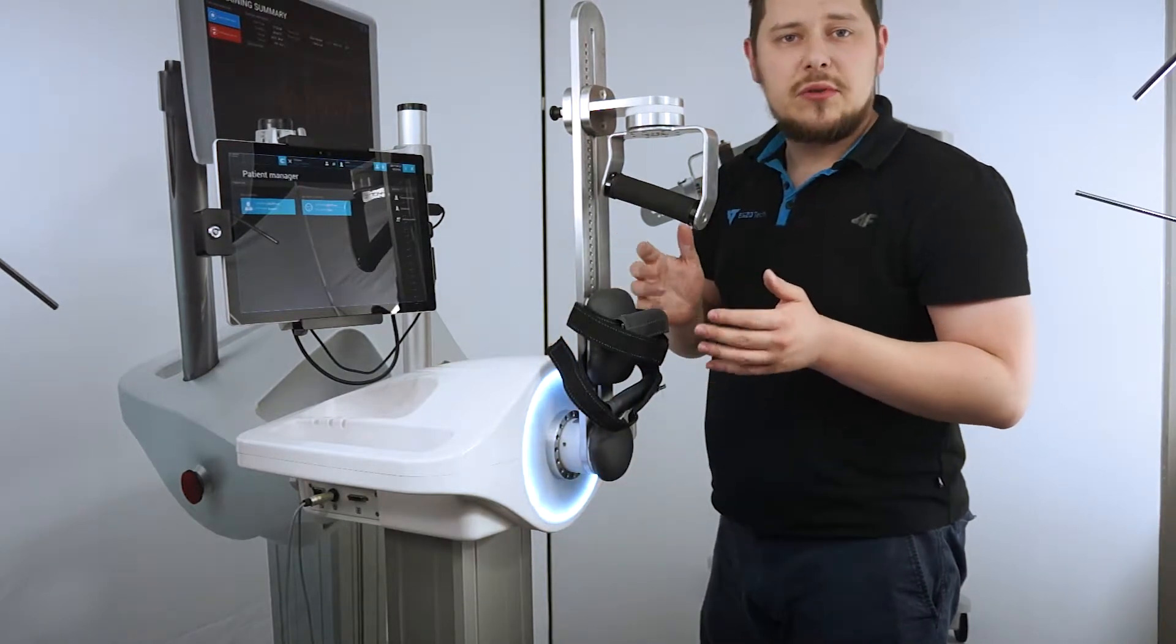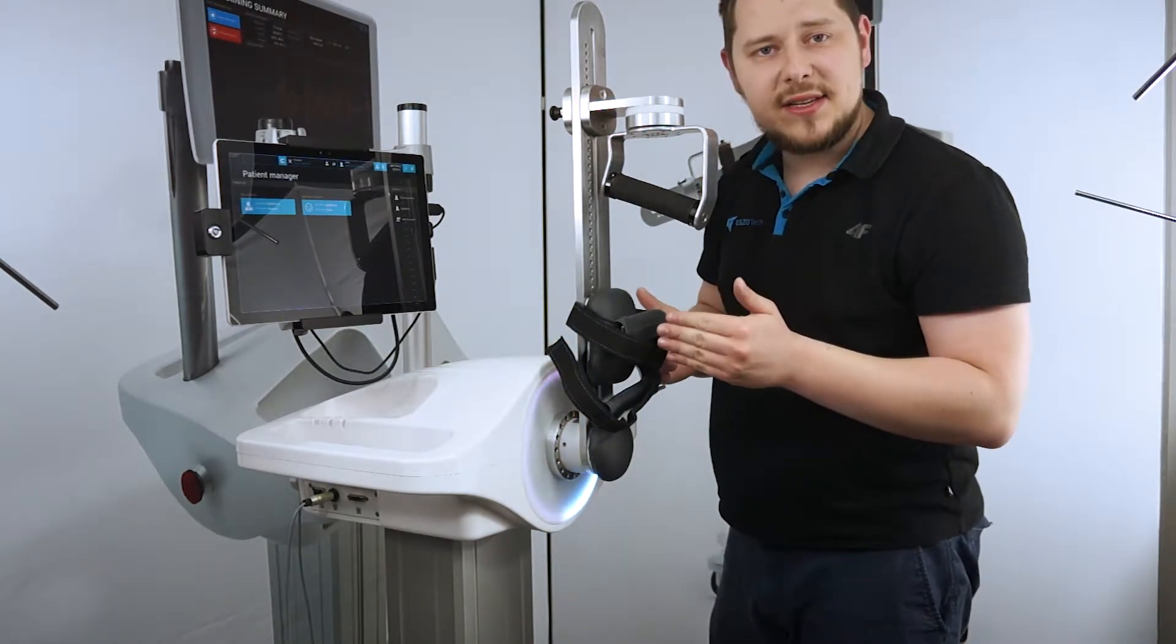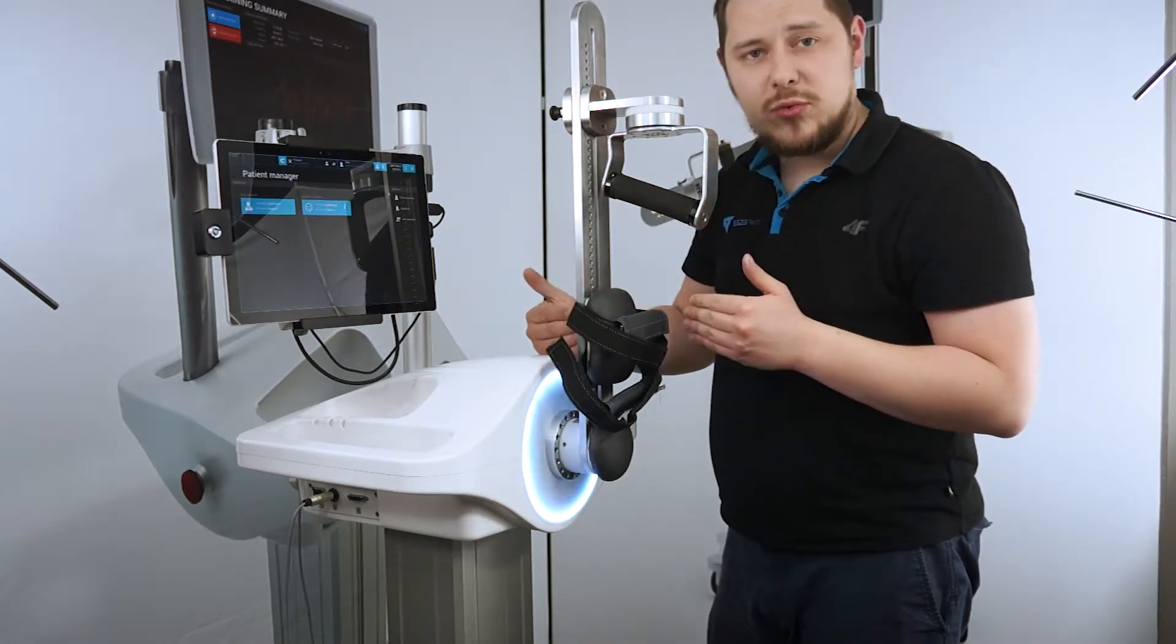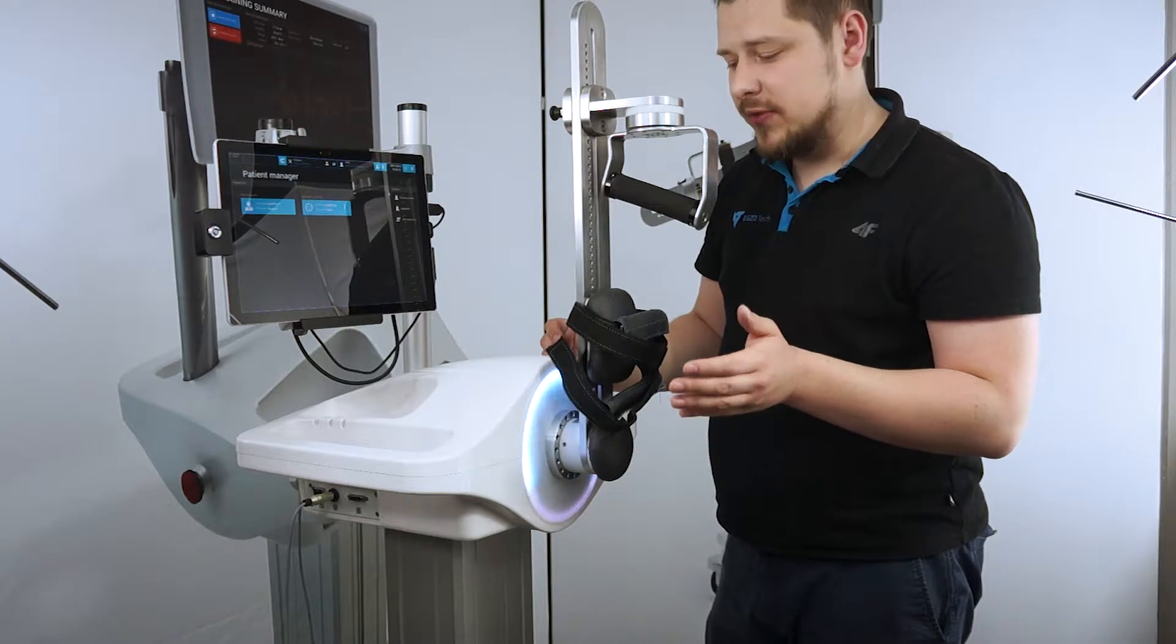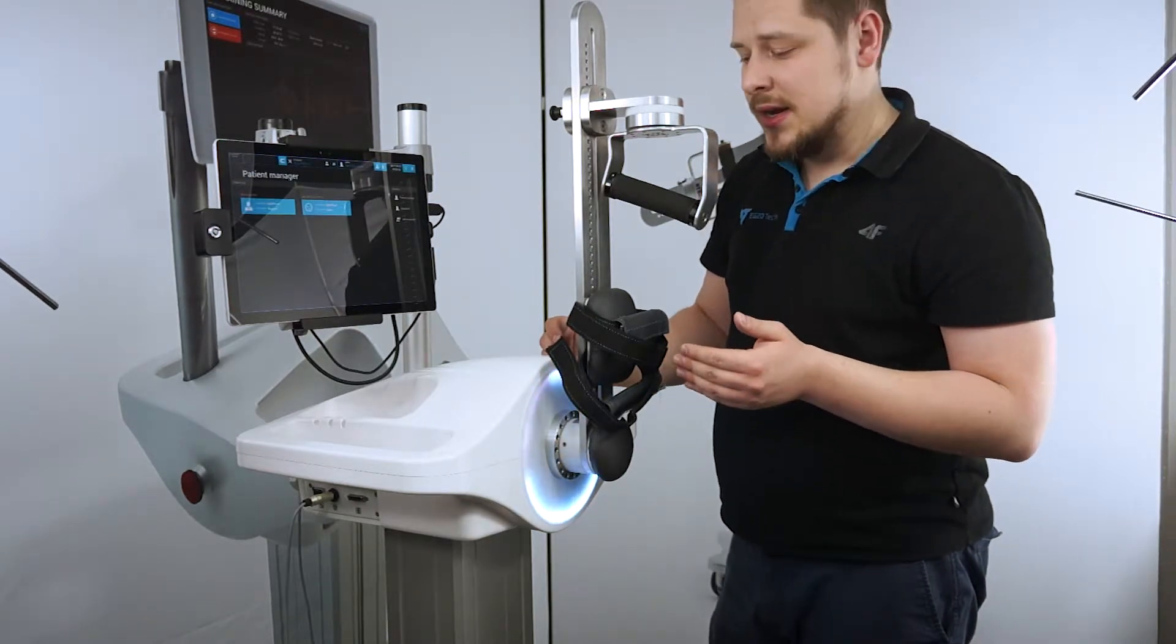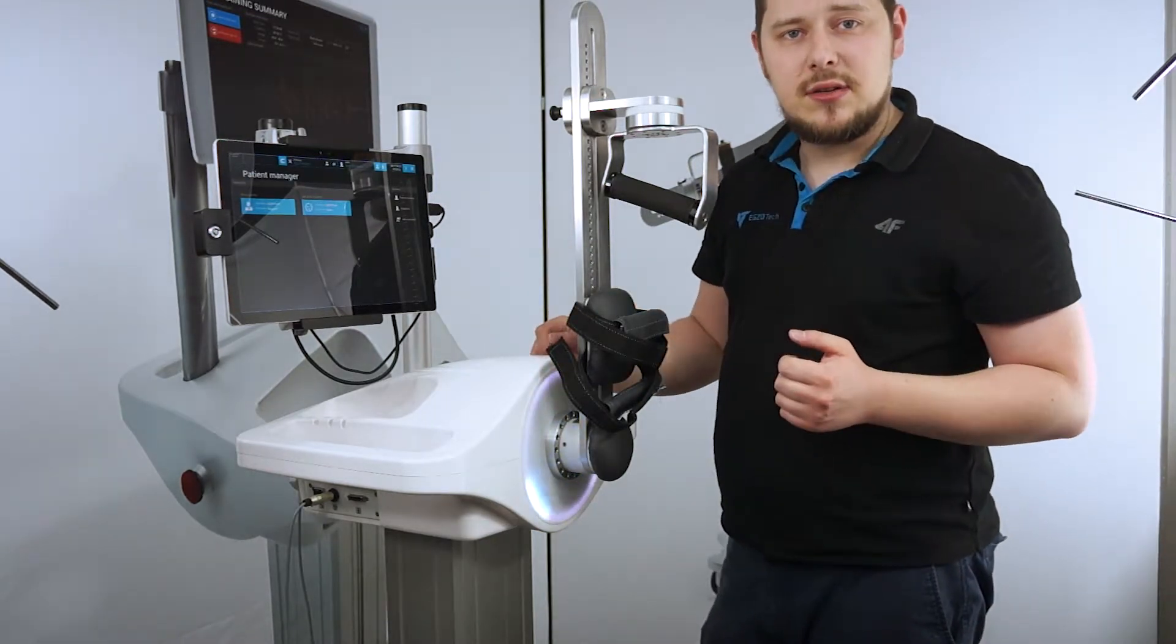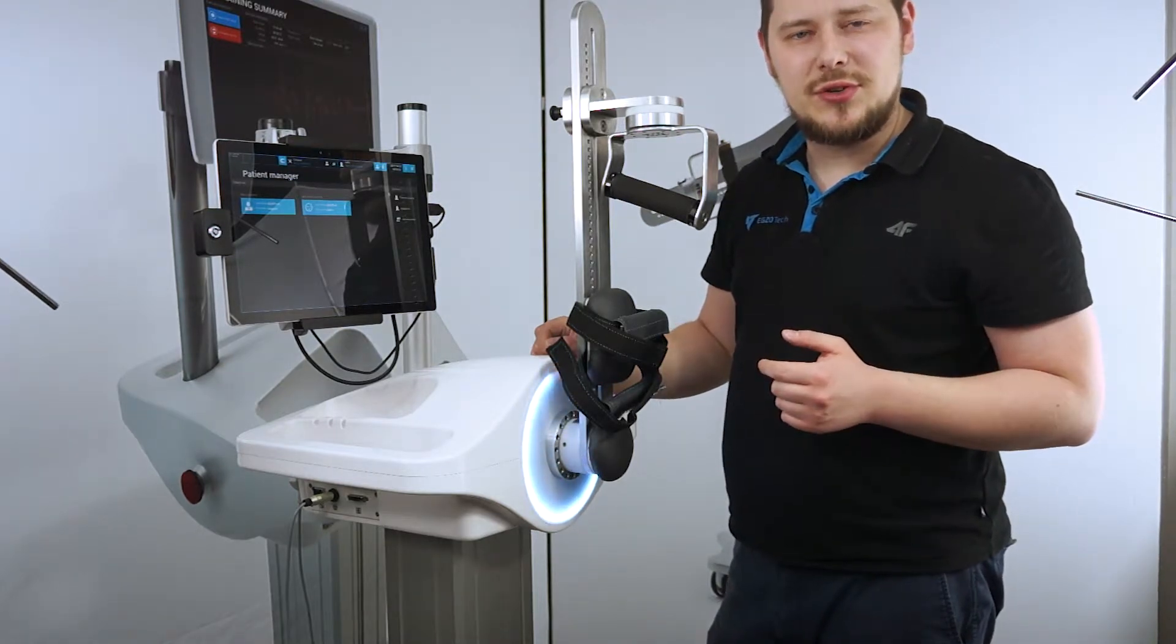If it's cleaned, as you can see, it's quite easy to put that in as well. It all boils down to practice and having the axis aligned quite well, because any misalignment will provide friction and a worse experience. With practice, you can get this connected really quickly - in under 10 seconds - and start the training.